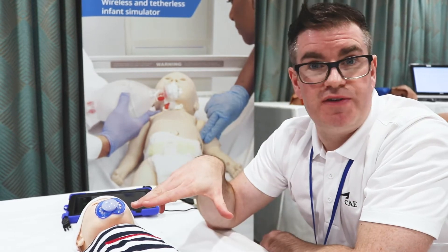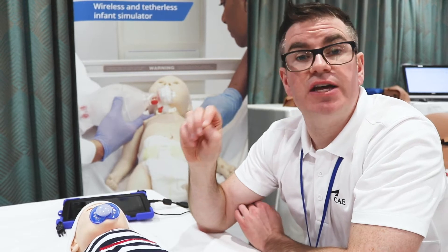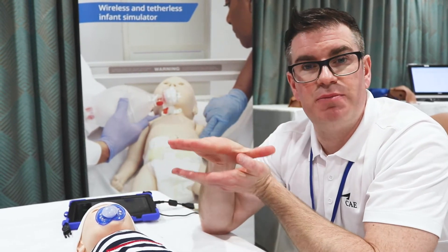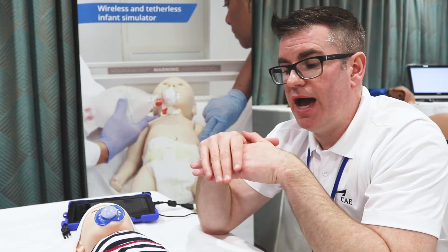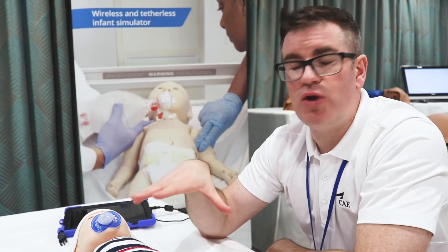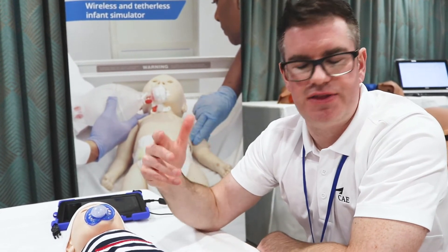You can also defibrillate Luna. We defibrillate using the Stethosim defib, which means we apply simulated pads onto the mannequin and don't actually put a live shock into it. The box will absorb the shock, so you don't have any problems with pads losing connection or defibs.